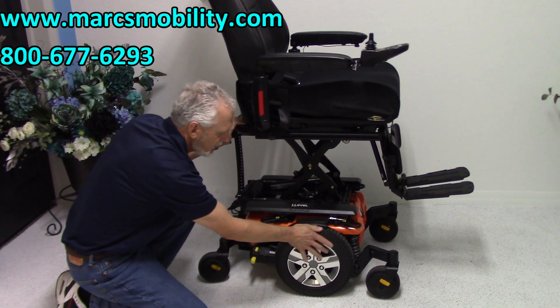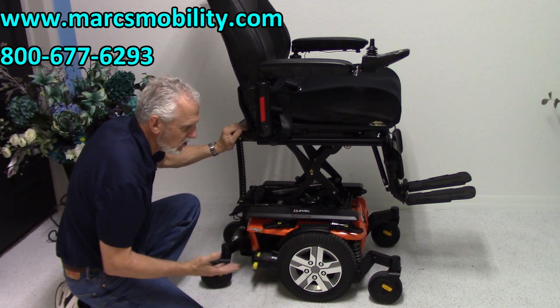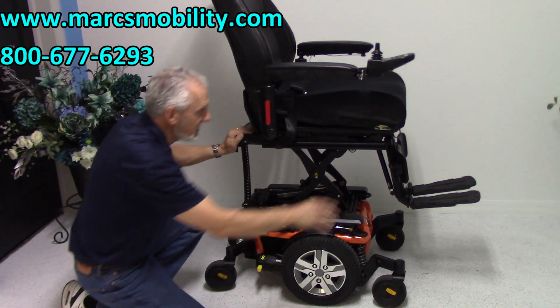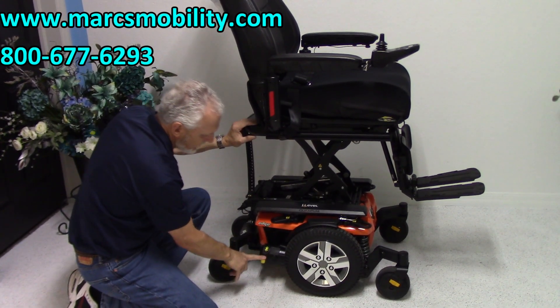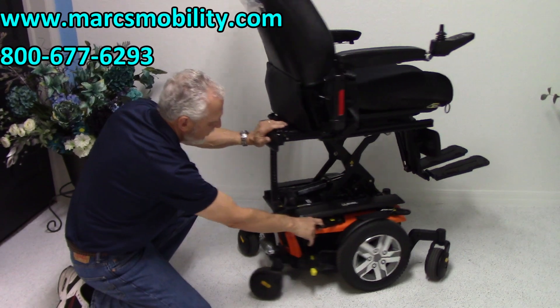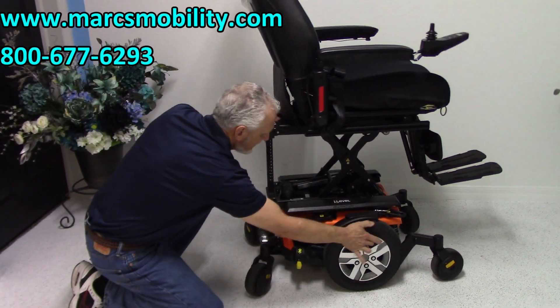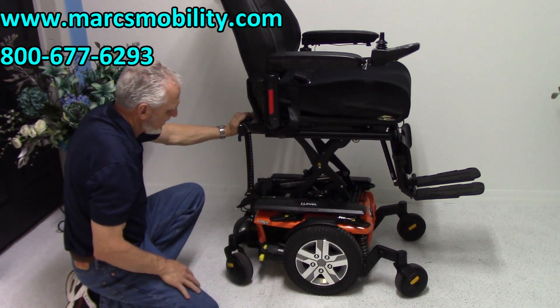If I was trying to push this chair, this chair probably weighs 300 pounds. There's no way I can push it because it's in gear. So I would bring the seat down and turn the power off. Then just by pushing this lever with one finger down, it unlocks the wheels. You have to do both sides — there's one on both sides. So to unlock both motors, then you can roll them. Back in gear and you're not going anywhere.